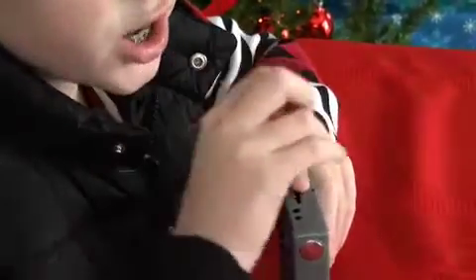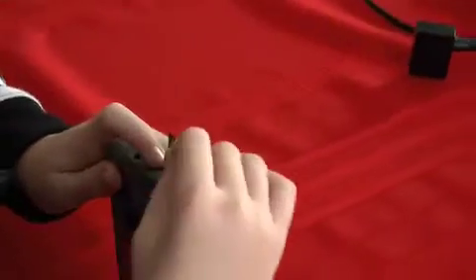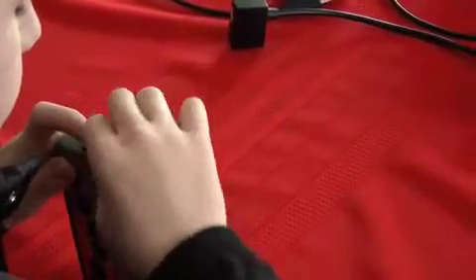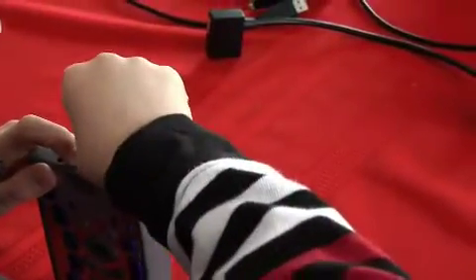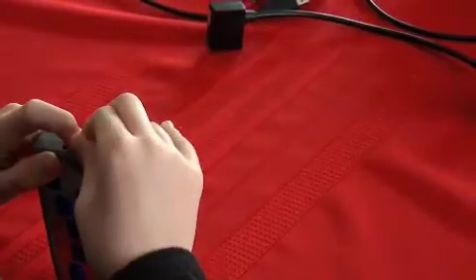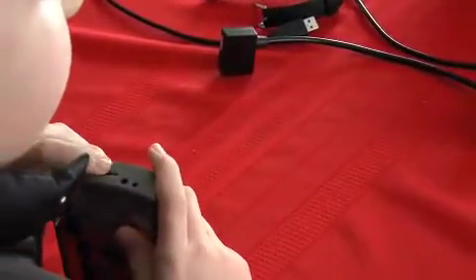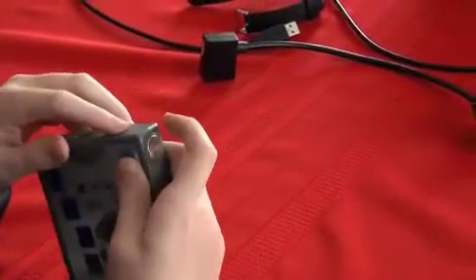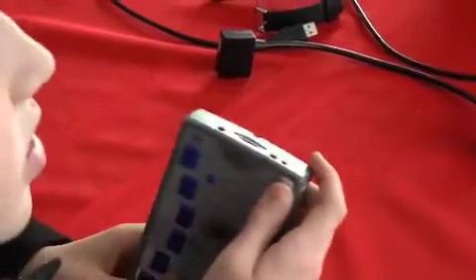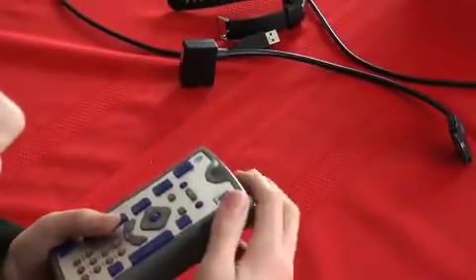I have one right here and all you have to do is push it right here. And this kind of reminds me of the battery because it only goes in one way. So you just slide it in right here and then you just push it down with your fingernail and you'll feel it click. Sometimes it can be really easy to get in, sometimes it can be hard. I kind of hold it click and then go a little bit back up and that means my mini SD card is in there. And if you would have your Braille Plus on, it would just say mini SD card added.